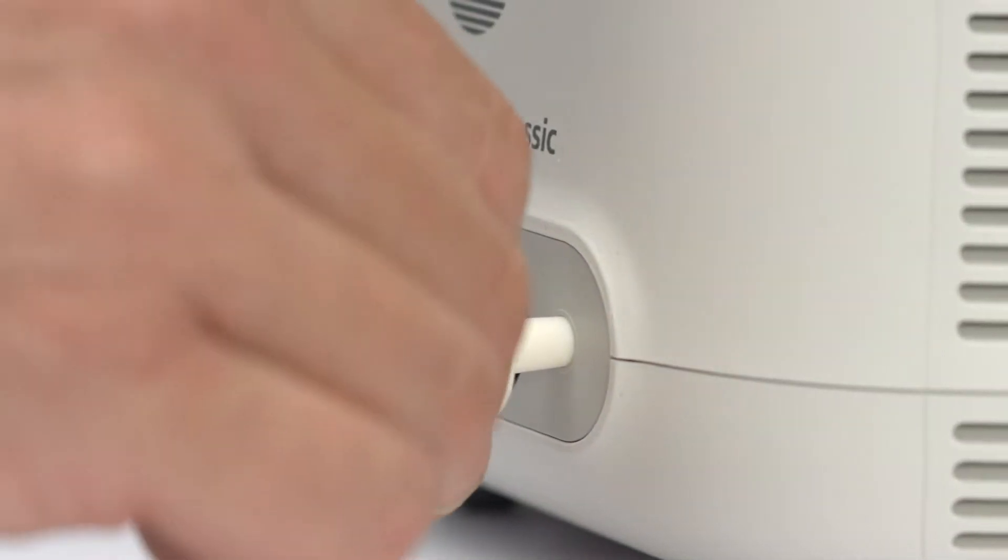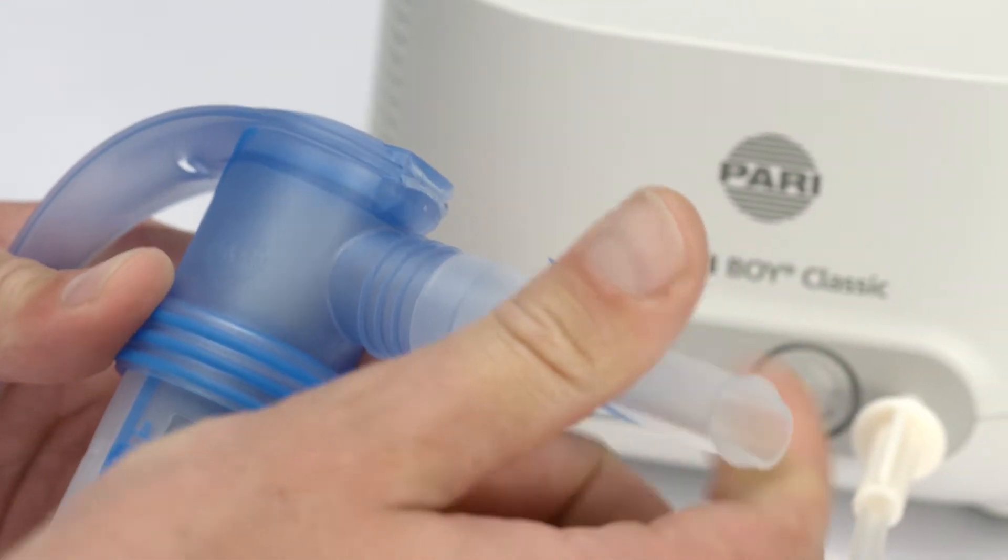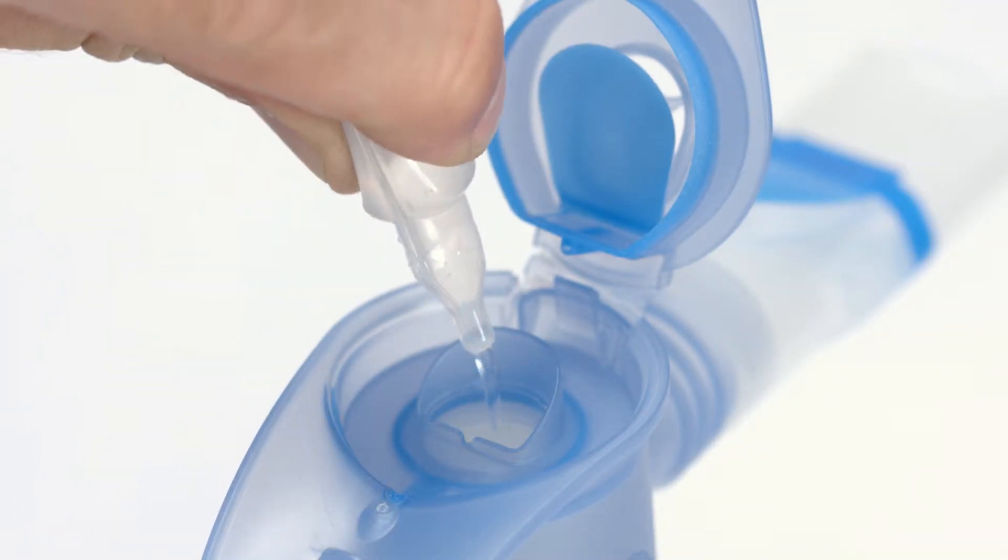Connect the nebulizer and compressor with the connection tubing. Attach the mouthpiece, then pour in the inhalation solution.